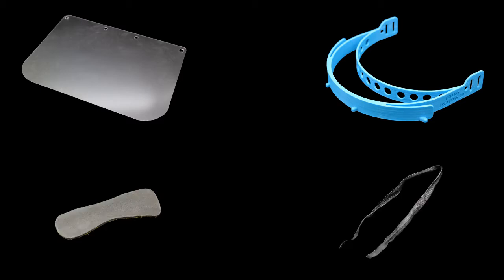Prior to assembly or disinfection, check that all equipment is to hand. This includes a single PETG face shield with double-sided protective film removed, a single headband visor, a single forehead cushioning pad, one elastic strap and the protective visor and PPE usage and disclaimer documentation.